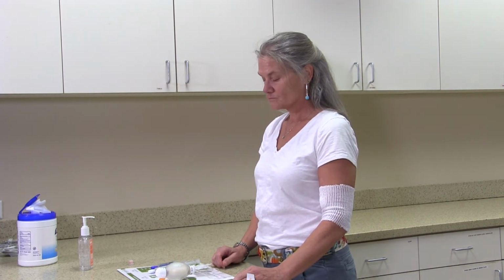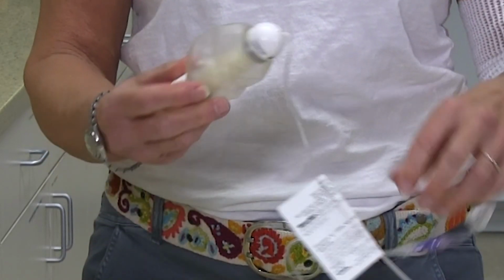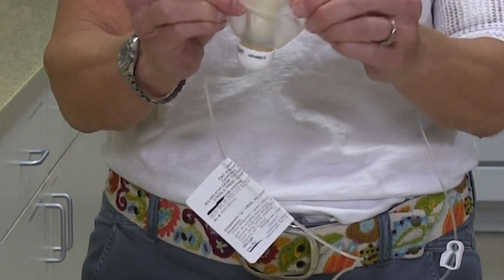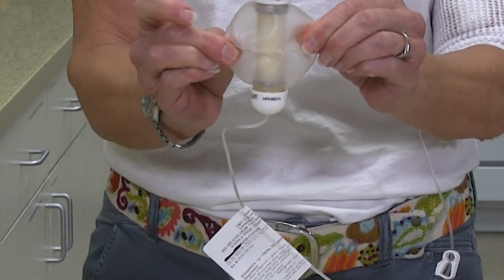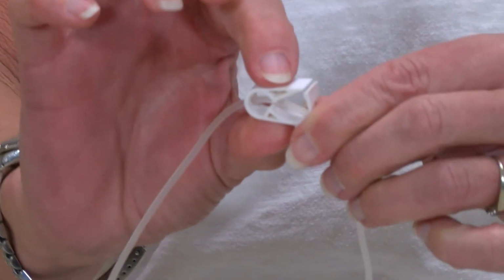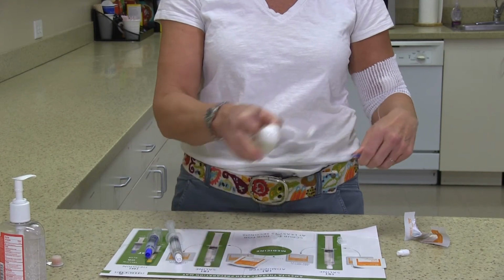The tubing controls how quickly the medication goes into your IV line. Once the preset time ends, the device should be empty. You will know the infusion has been complete when the device is flat in the middle. If there is still medication in the device, allow it to continue to infuse until the device is flat. Once the device is empty, clamp the tubing on the device and remove it from your injection cap, and discard the entire tubing set into your trash.